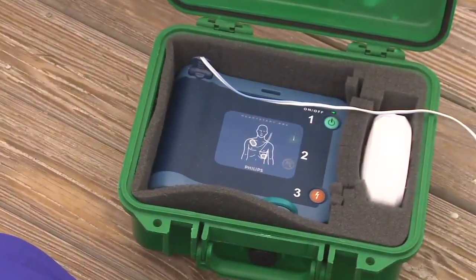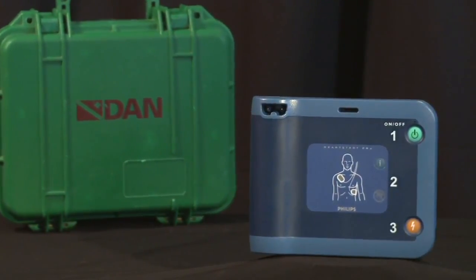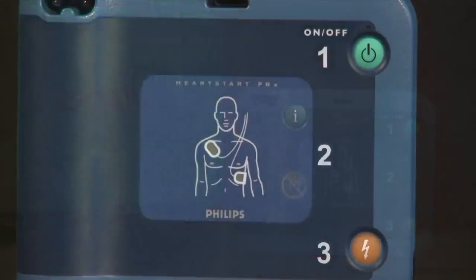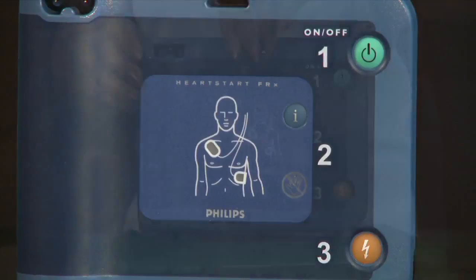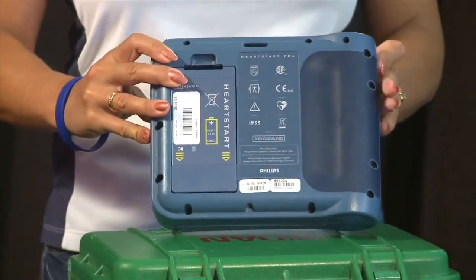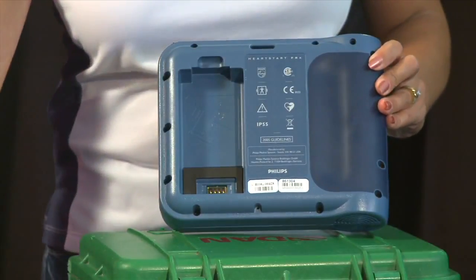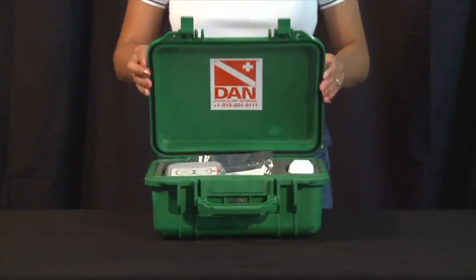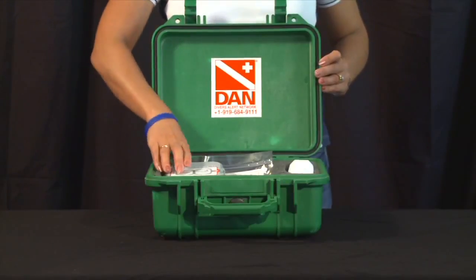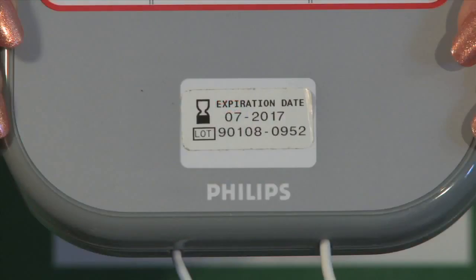You may also need to check for a low battery. AED units don't require a lot of maintenance. Every day you should check the status indicator — if a problem is indicated, do not attempt to use it until it's been corrected. Low battery power is a possible problem; to change batteries, simply install a new or freshly recharged one. You should regularly check all the supplies and spares in the kit, as they are all dated, so make sure you have not exceeded any of those dates.